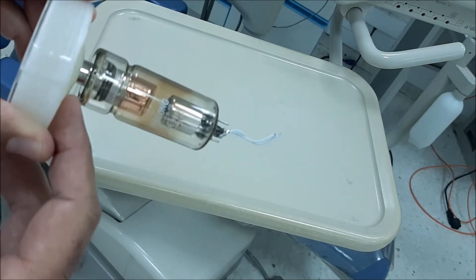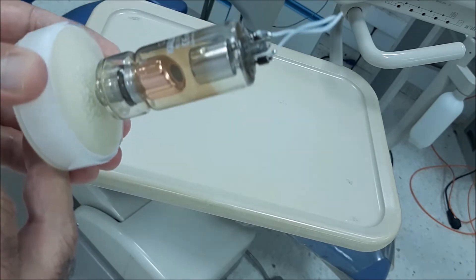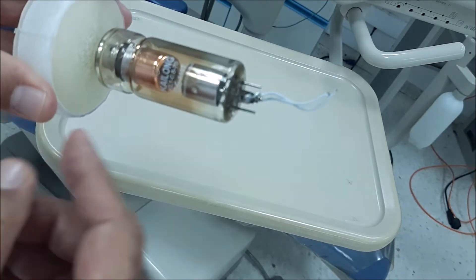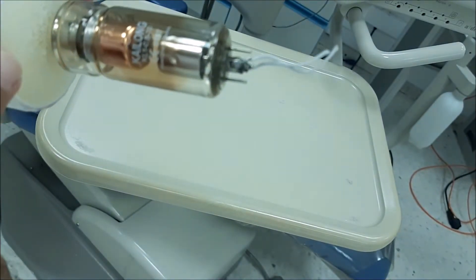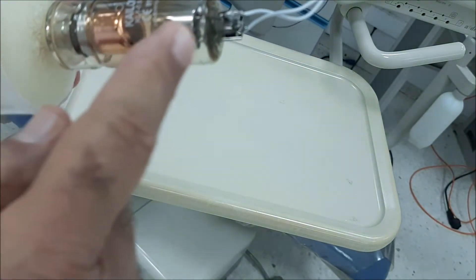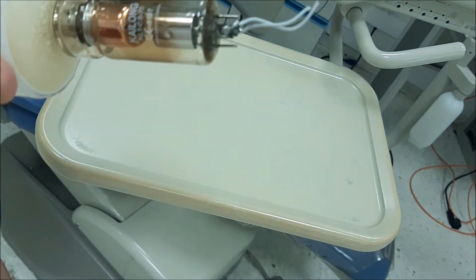and you will see that every X-ray machine is actually composed of this very special part, which is the X-ray tube.